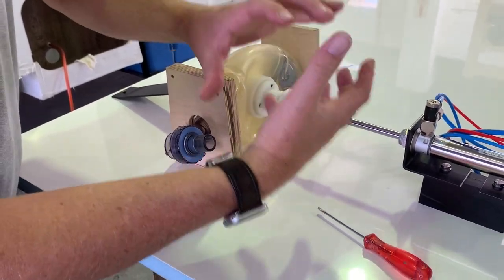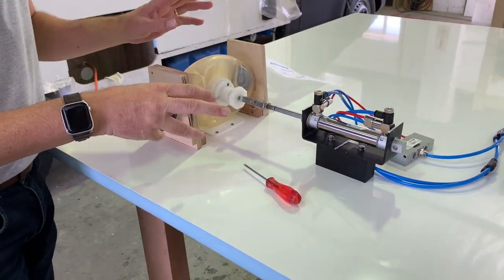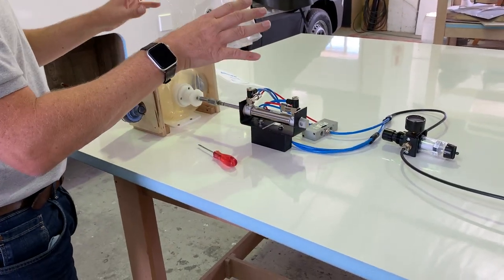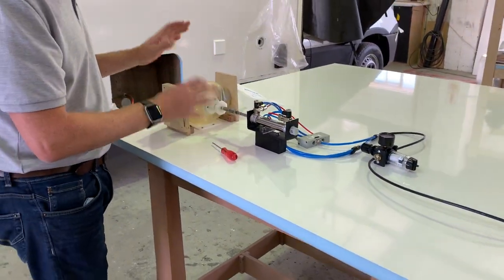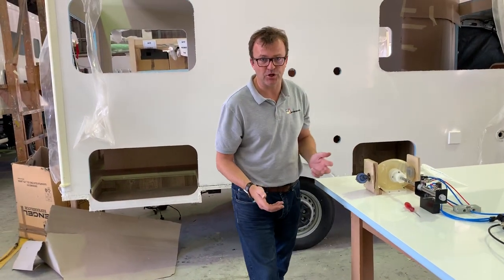We can adjust that shaft is on a spring, so that is also adjustable on tension. So there is already adjustment built in, but there's a lot more we can do. We can do valves and install to make it more secure. So yes, please, people, contact us. Let us know. Thank you.